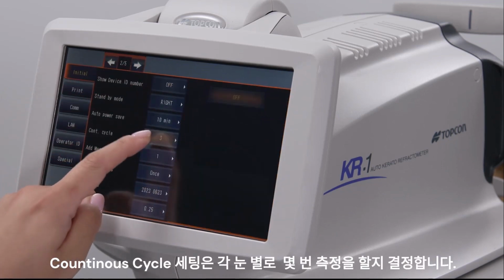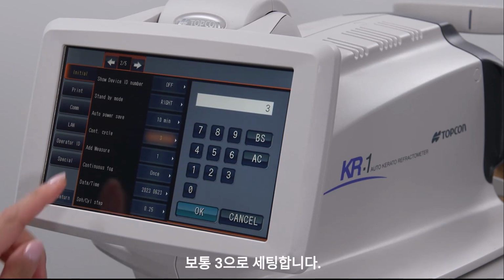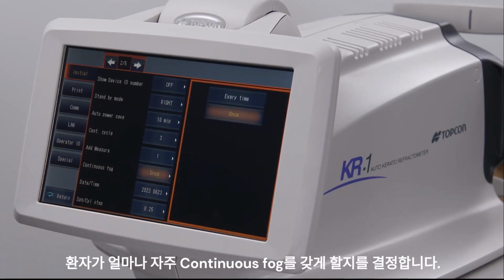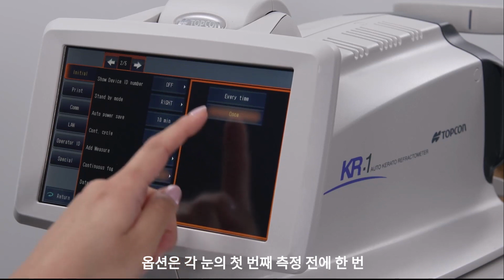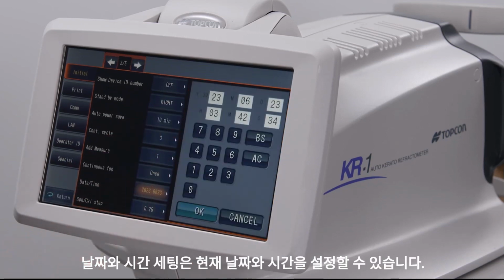Continuous cycle, which determines how many measurements are required of each eye. The usual number is 3. Continuous fog, which determines how often the patient will have their vision fogged to help prevent the autorefraction from being over-minused. The options are once before the first measurement of each eye or once before every measurement. Date and time, which allows you to set the current date and time.